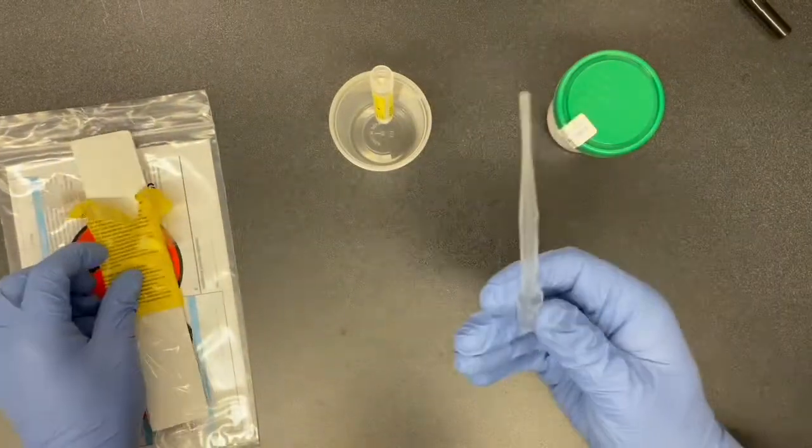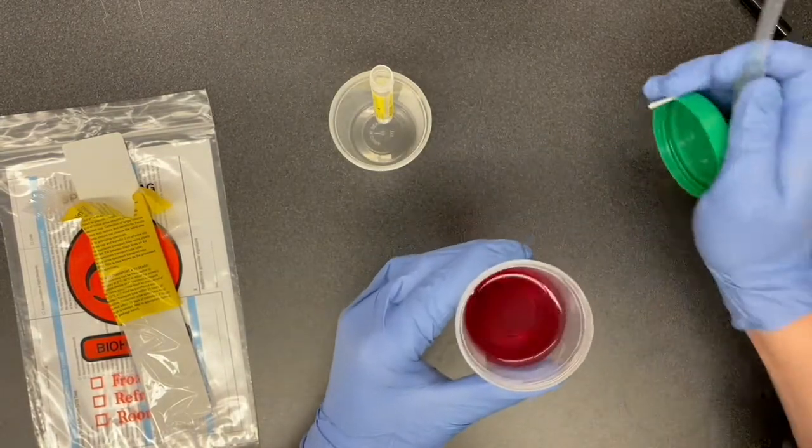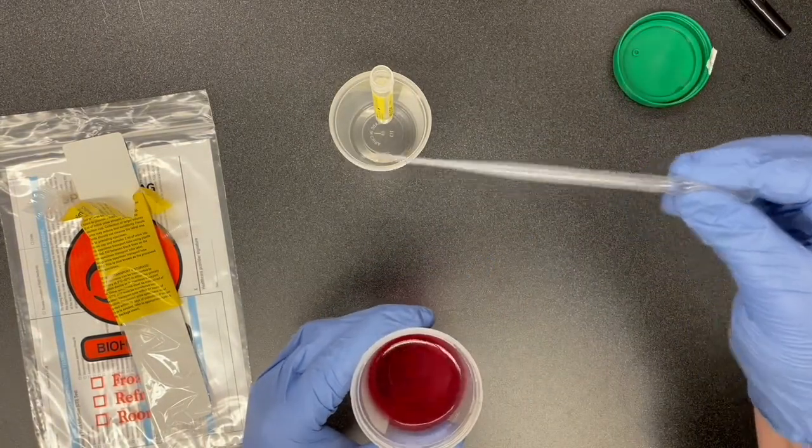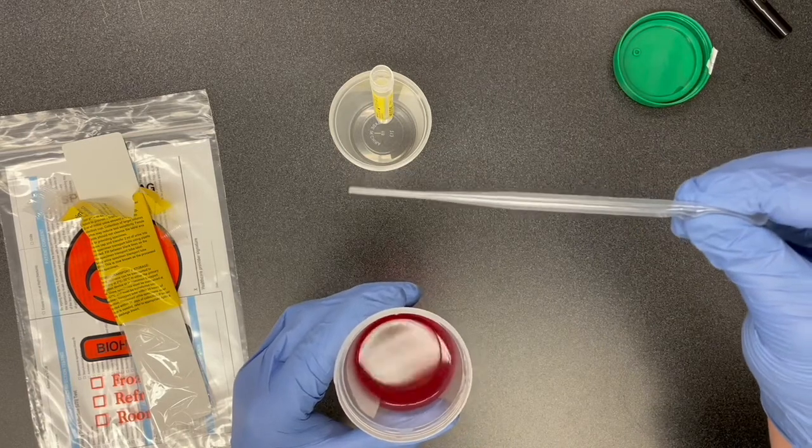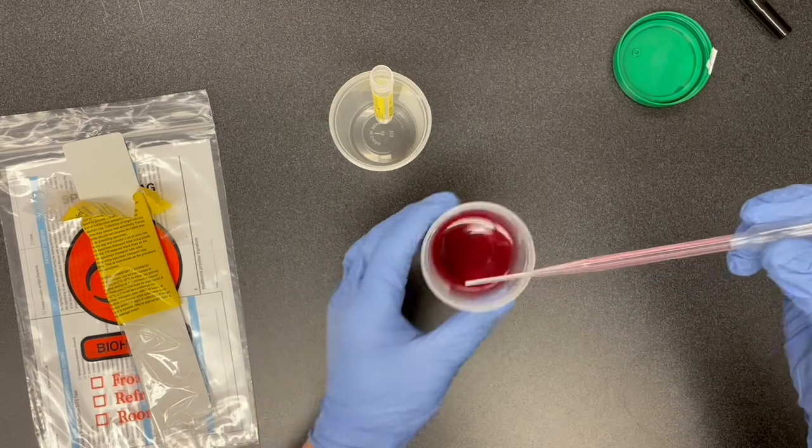Take our pipette, unscrew the sample cup. I'm going to squeeze the bubble at the end of the pipette in there, and release the bubble to draw up our sample.